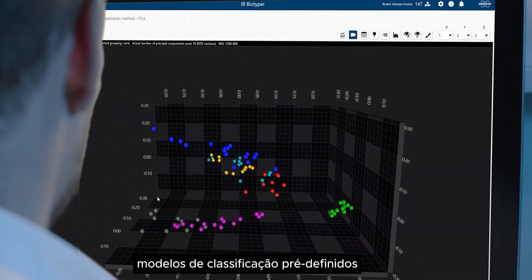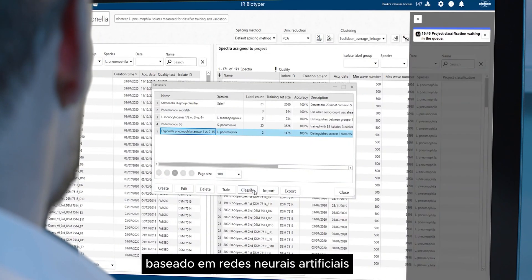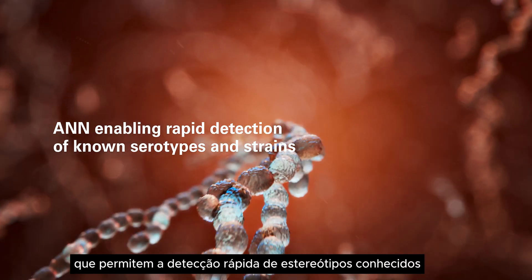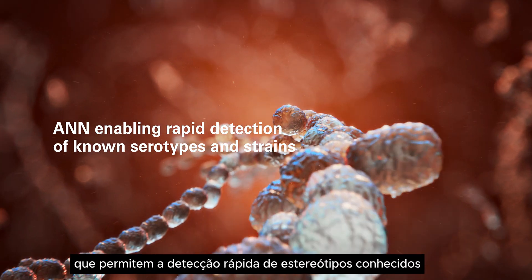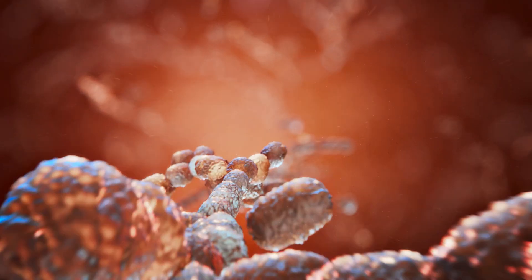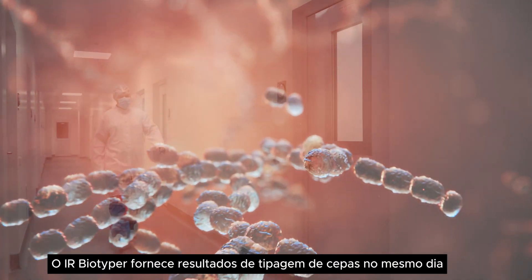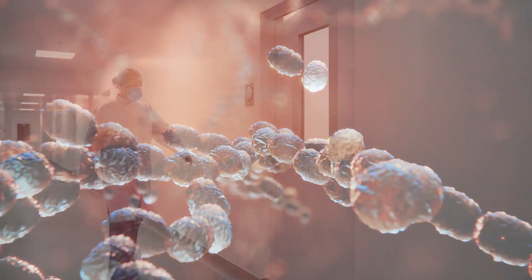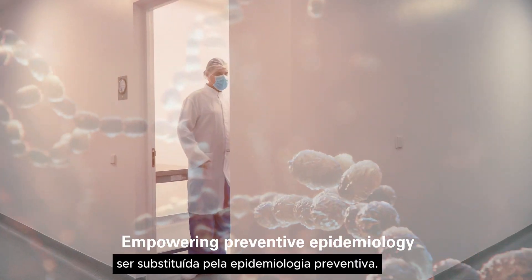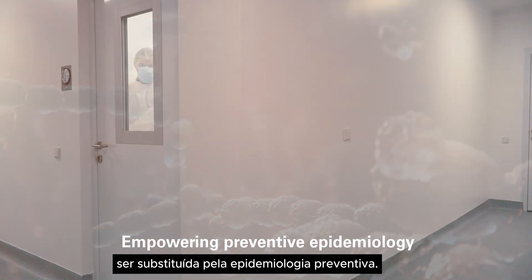Pre-defined classification models, based on artificial neural networks, enable the rapid detection of known serotypes and strains. The IR Biotyper delivers same-day strain typing results, allowing retrospective epidemiology to be replaced by preventive epidemiology.